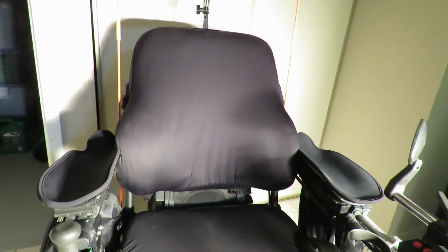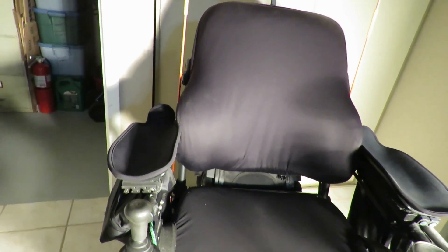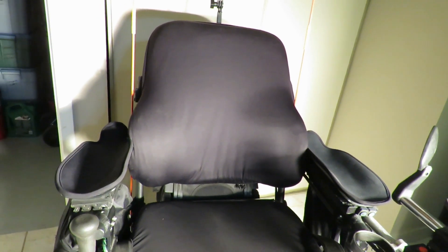Wheelchairs have to be able to fit through standard doors. When wheelchairs are engineered, they're engineered very carefully not to waste space so the person can be safe and comfortable and fit through the door. Right now these armrests we ordered are actually out a little too far — they really need to be in two more inches. So right now when this chair goes through a door, both armrests scrape against standard doors. The chair is actually too wide.